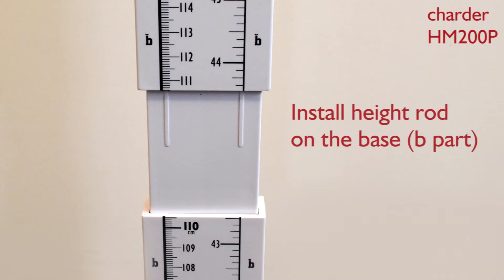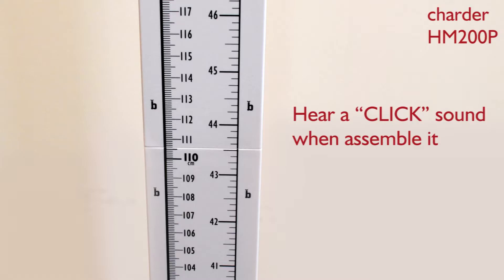Assemble the rod B and B together. It's well connected if hearing a click sound.